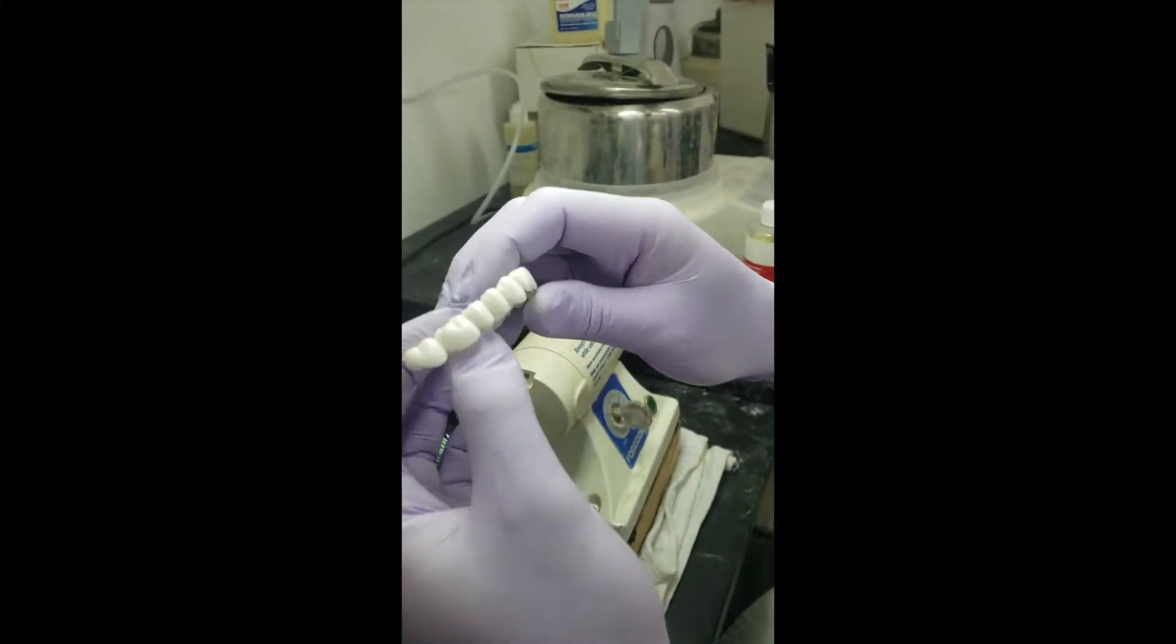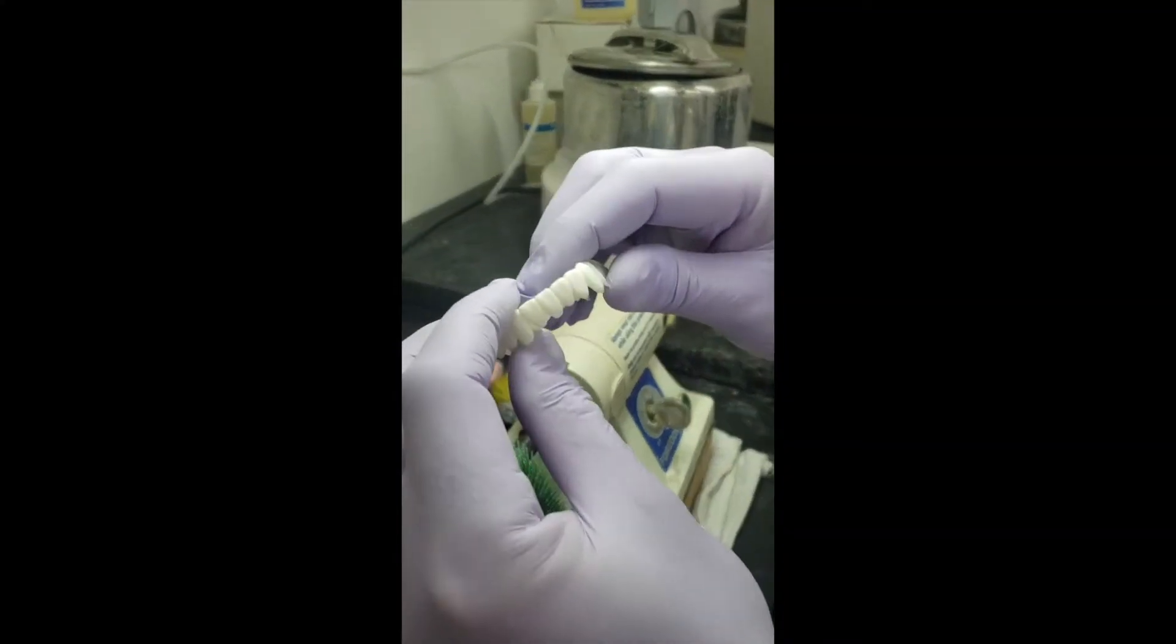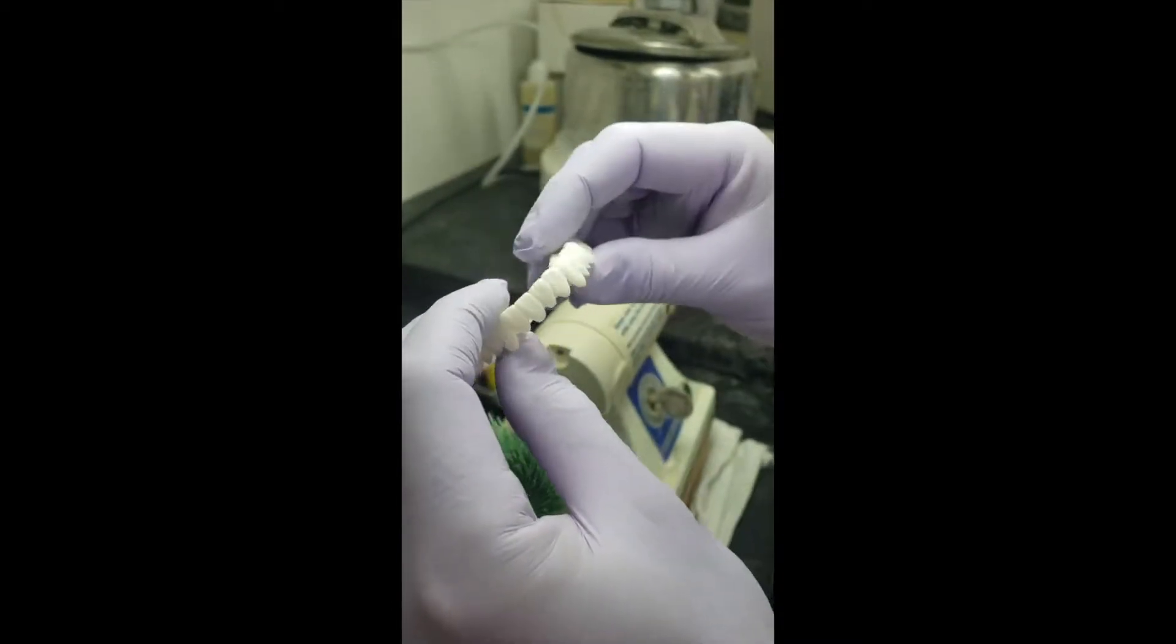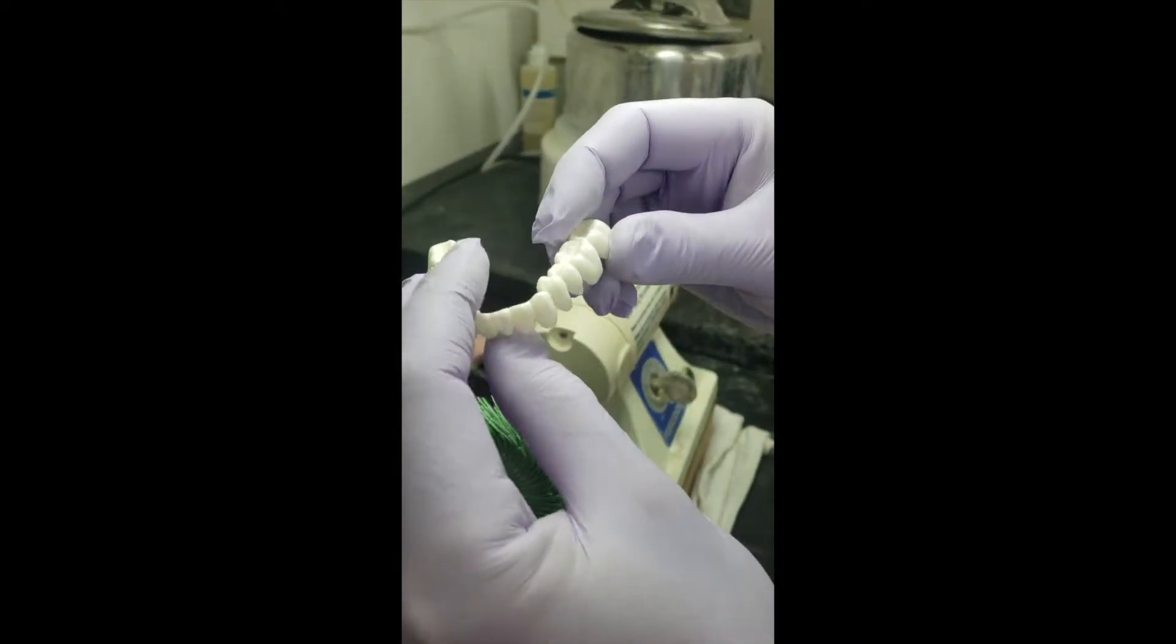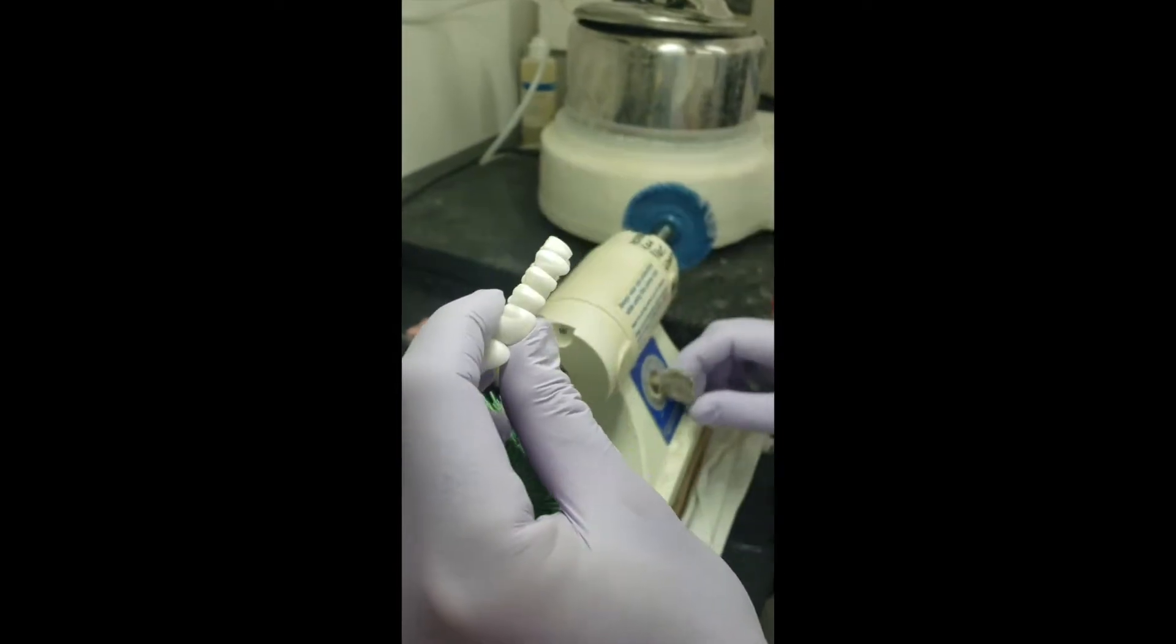So you can see here the surface is nice and smooth, the texture of the Mamelon stays because of the brush but gets smoothed out and so this is ready for high shine.